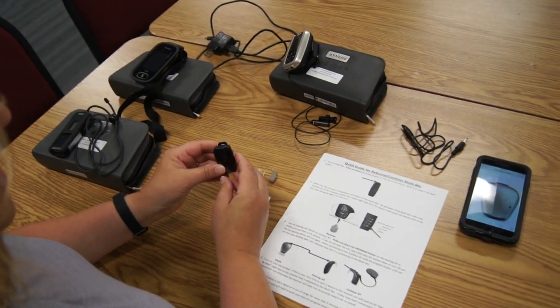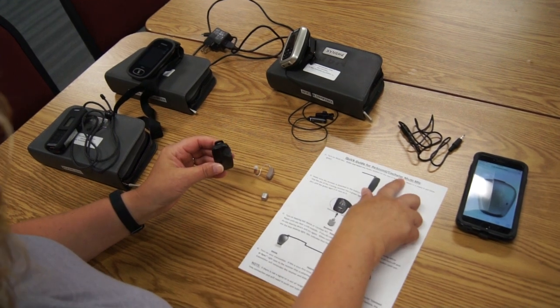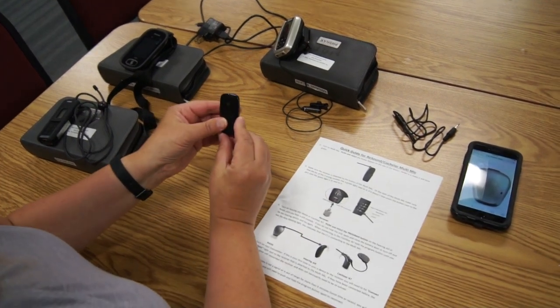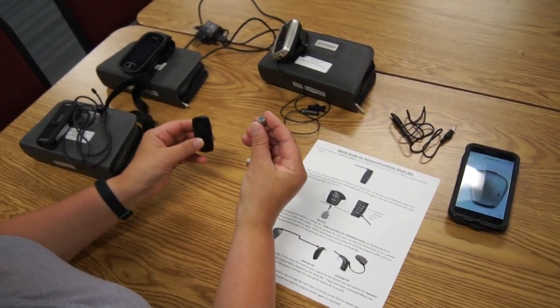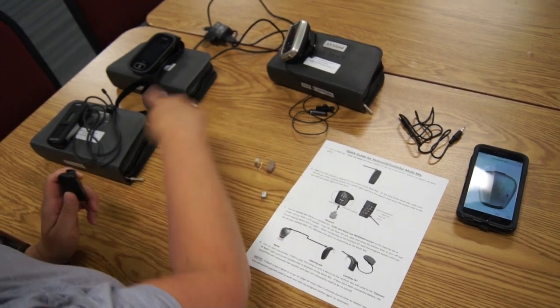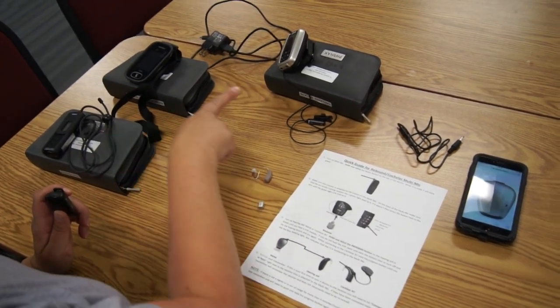This video is going to go over the cochlear multi mic. If you have a multi mic, you'll also have a receiver or one of these three transmitters.